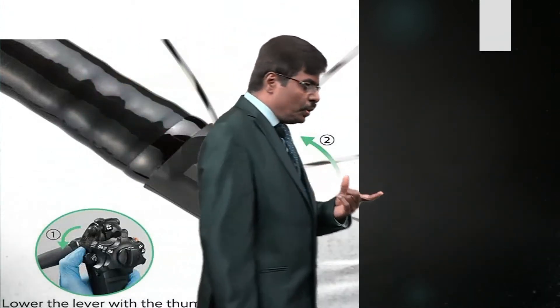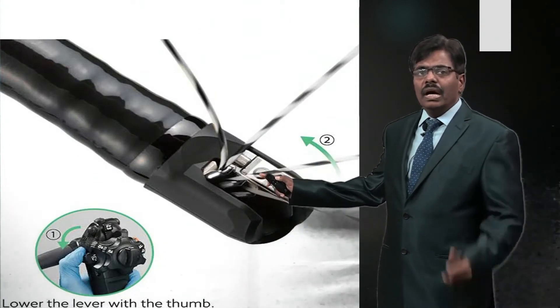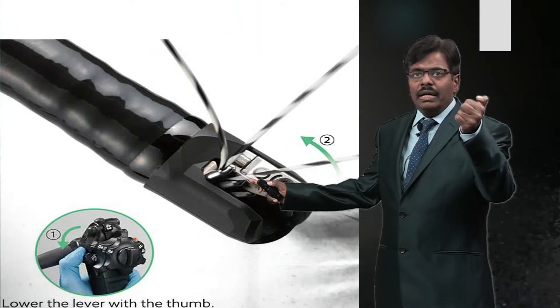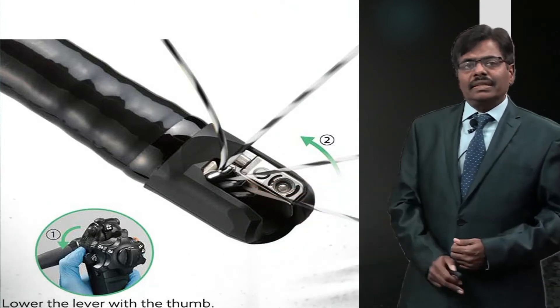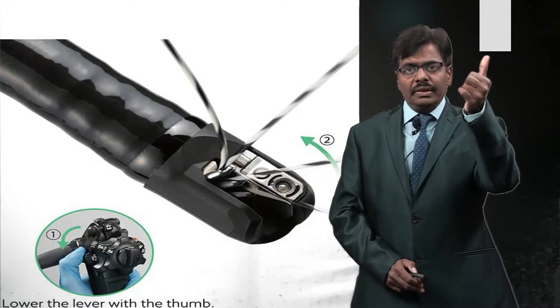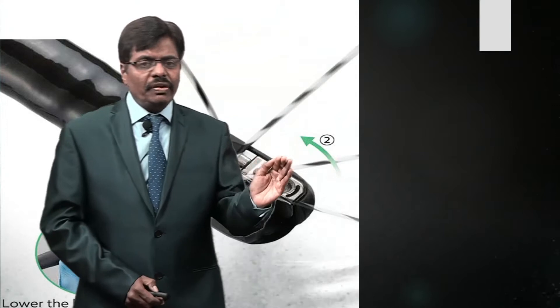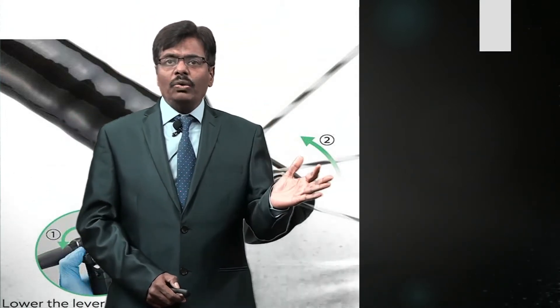This picture shows how the elevator helps. As I insert my finger down on the elevator control in the head, the elevator lifts the accessories and drives them into the pancreatic or biliary duct, depending on how much downward pressure you apply and the angle. The elevator is essential — if it is not functioning or breaks mid-procedure, you may have to abandon the procedure unless you have spare equipment.